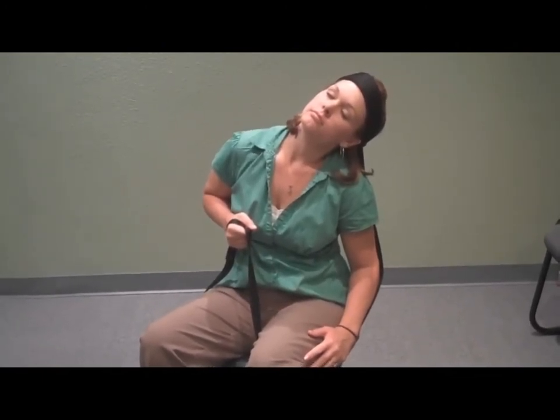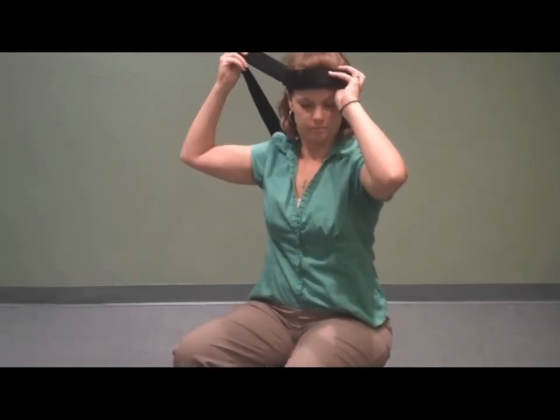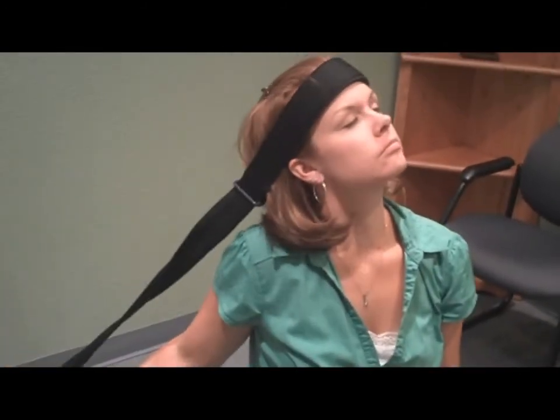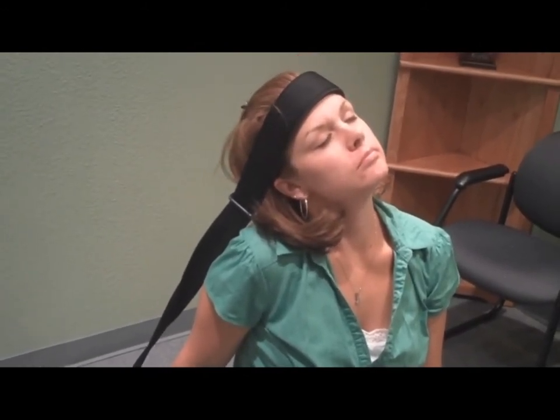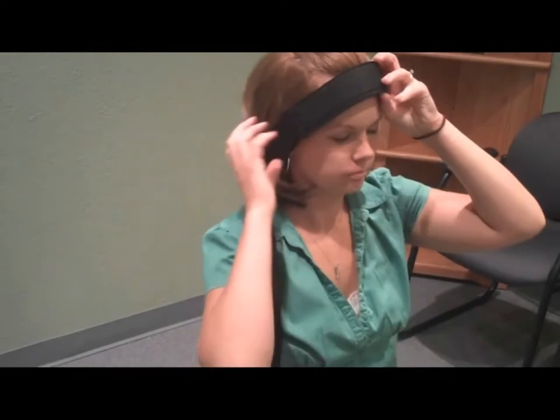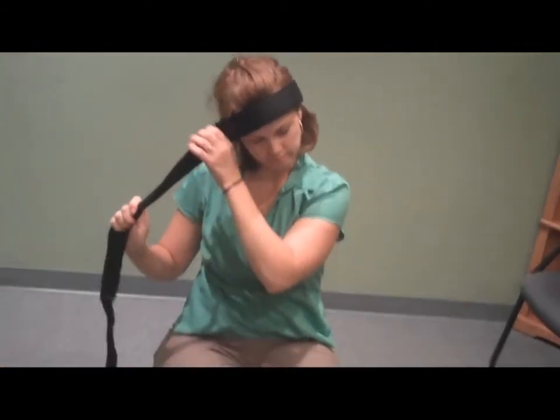When she's finished with this, she will simply rotate it to the other side, continuing going in a circle. She'll be 30 degrees behind, then directly over the ear, just like she was on the other side, and she's going to pull it down just like she was. She'll be able to put that under her leg like she did before, and then go directly over her ear and pull straight down to the side.